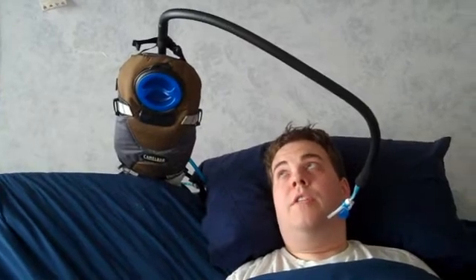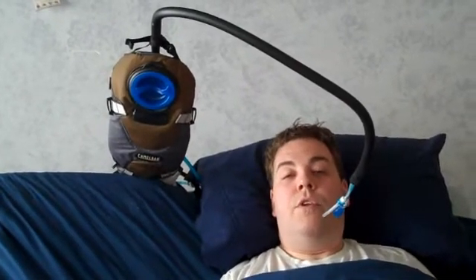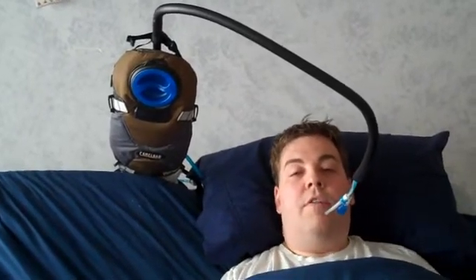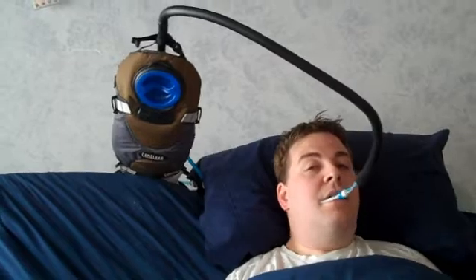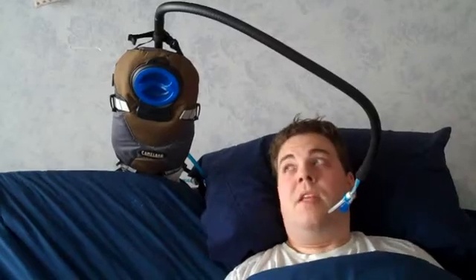From there, there's a straight section of pipe that comes up so it extends up high enough to not obstruct your view or obstruct movement when you're in the bed — lifting the covers on and off, moving your arms around. And even at 50 inches long, it's rigid enough that it stays in place and doesn't move around or fall away.